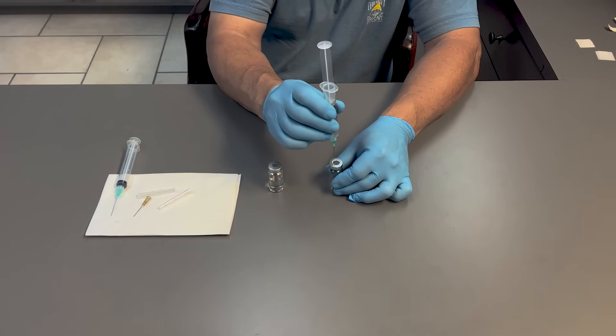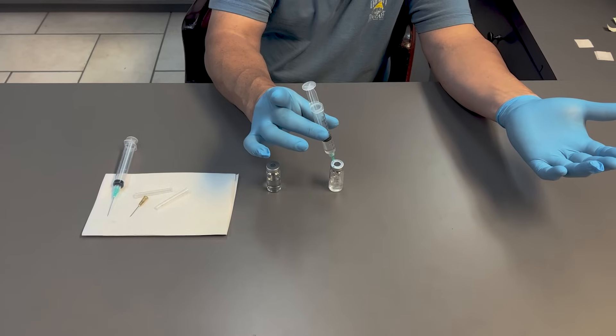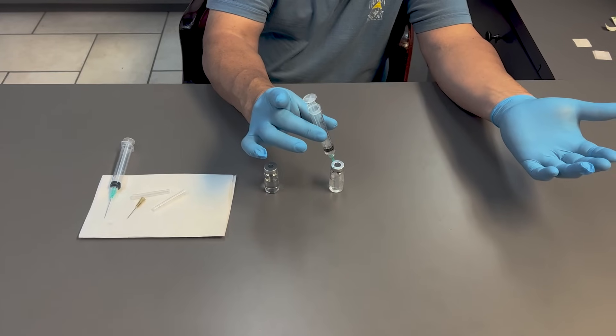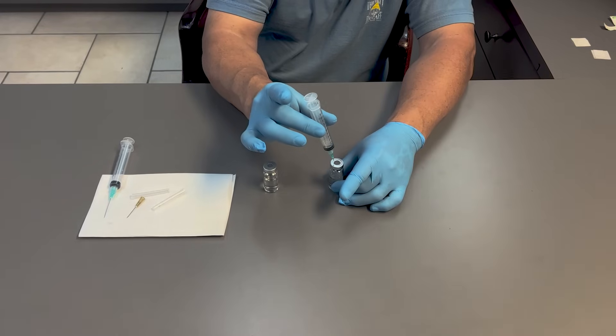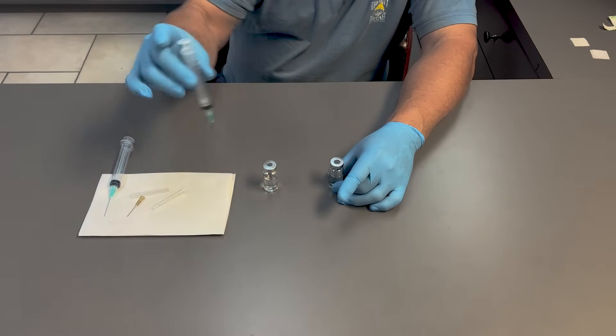you barely even have to push the plunger. As soon as you go, you can see I'm not even pushing the plunger. It's sucking the fluid right out of the syringe because it's a vacuum, no need to vent it.